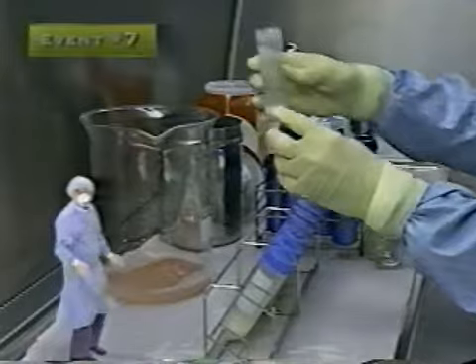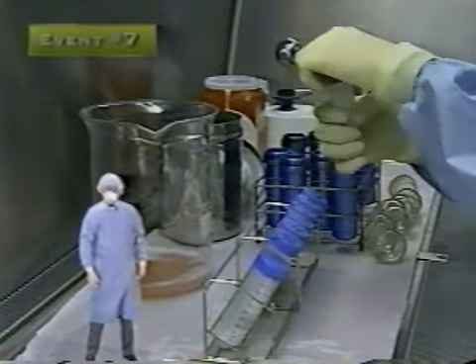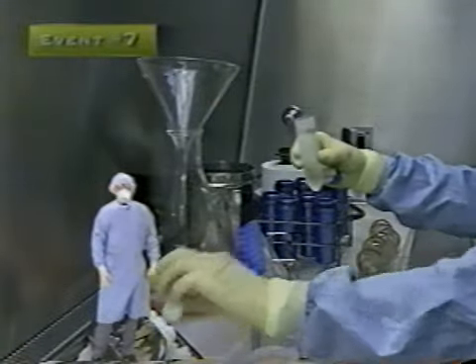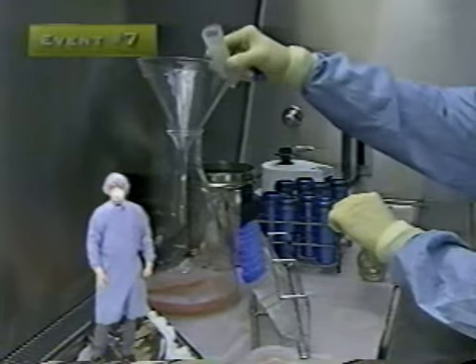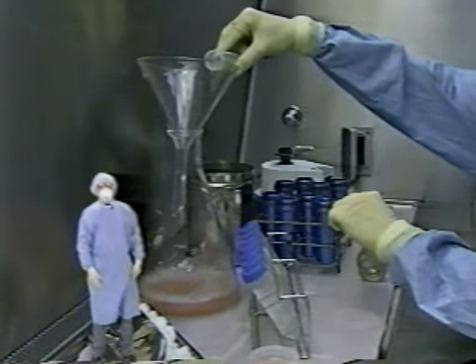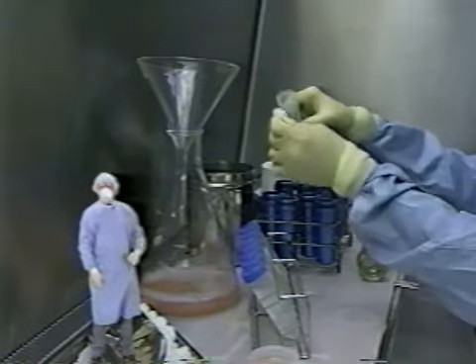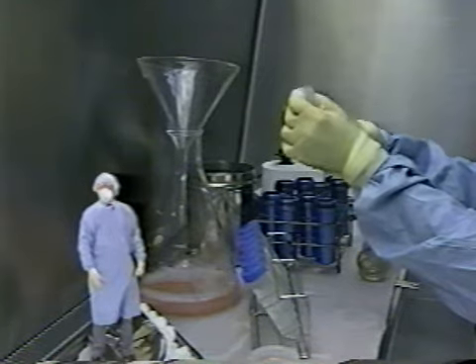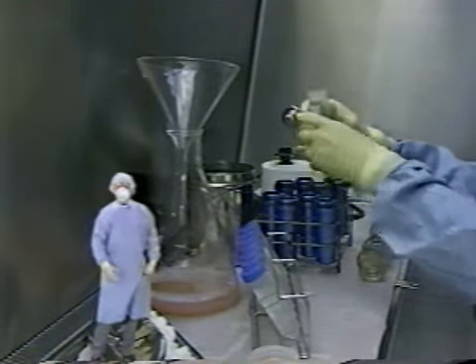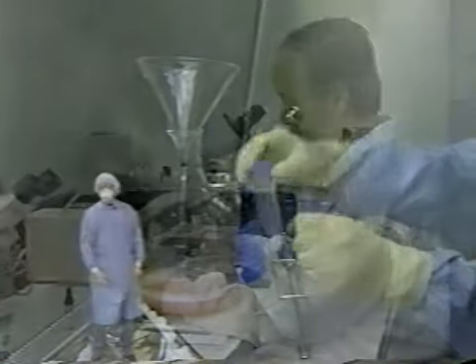Oops! That specimen may have been cross-contaminated, or the mycobacteria killed by the disinfectant in the solution. When pouring off supernatant fluids, avoid splashback of potentially infectious organisms from the waste fluid in the discard container. One way of preventing this problem is to pour liquids down the sides of a funnel placed into a larger container. Another preventive measure is to process all known or suspected positive specimens last.